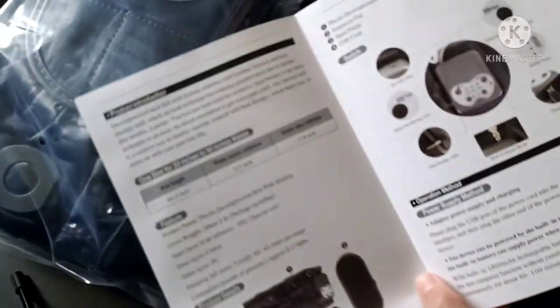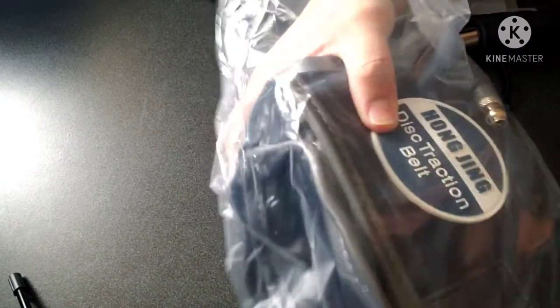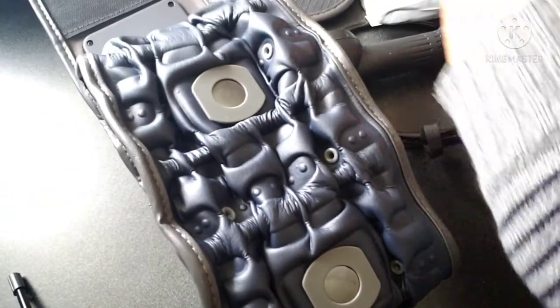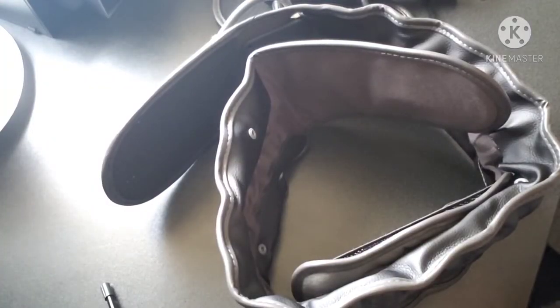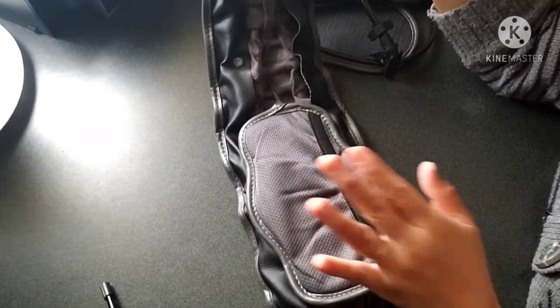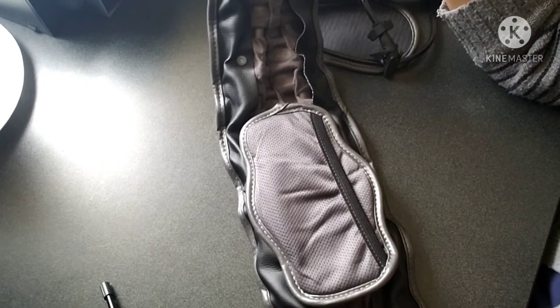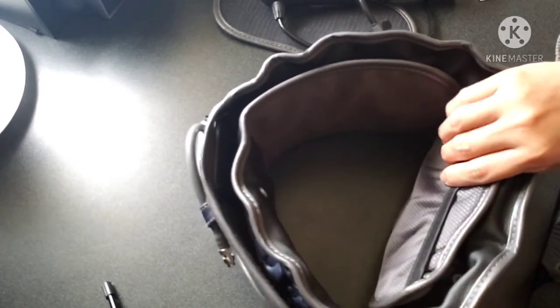Let's open the belt and see how it looks. You just put it on your waistline, and this is the heating pad — it's very comfy when you put it on your waistline or tummy. This is very all-around for me because if I have my period I can put this on my belly and use it as a heat pad.